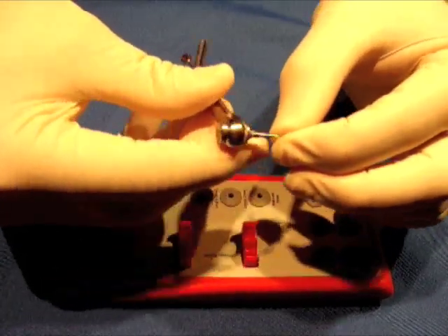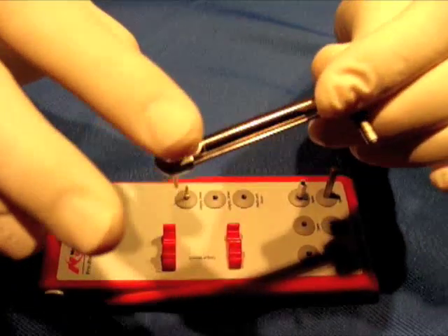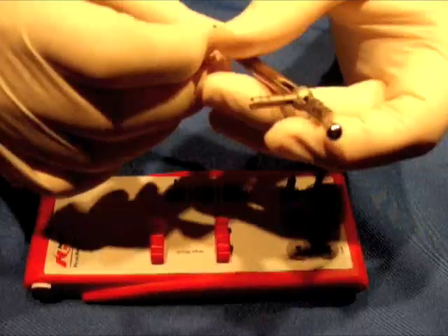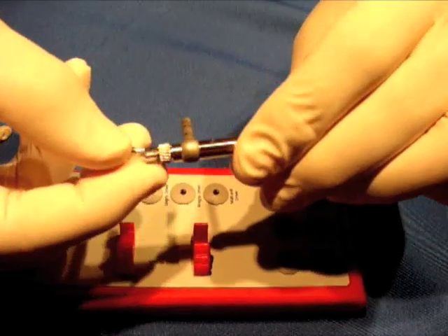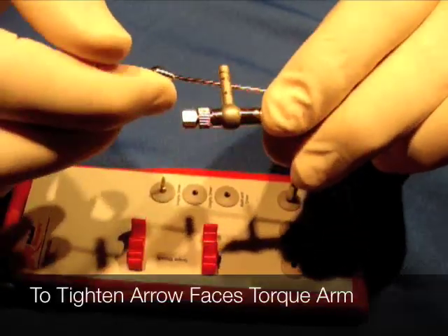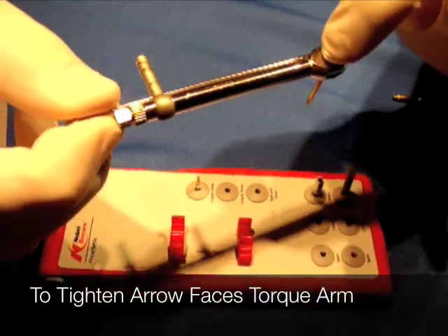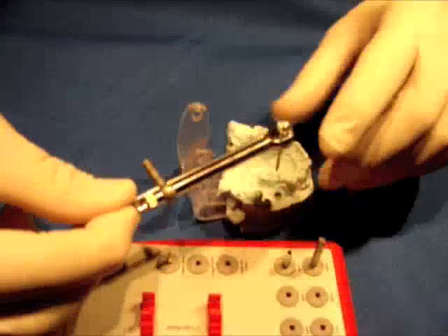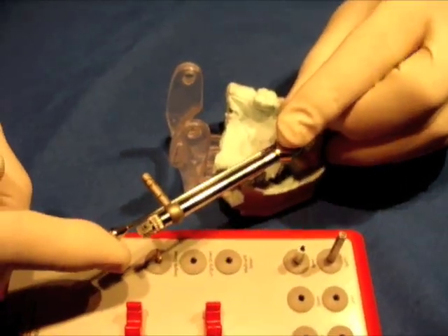You always want to make sure of a couple of things. Make sure that the Nobel BioCare marking is at the back of this unit — whether it's used on the top or the bottom, it's the same. Also make sure that the piece that goes in and out is facing the way the arm goes when you're tightening. You never want to touch the arm — you want your finger on the end and then move the tier. Those are the two fingers that touch, nothing else.